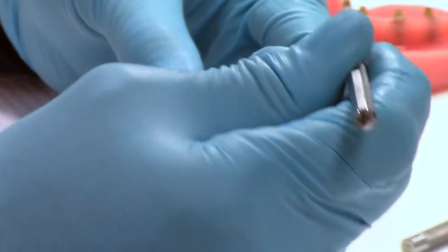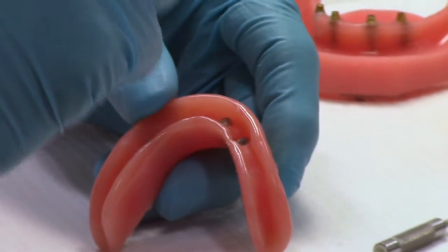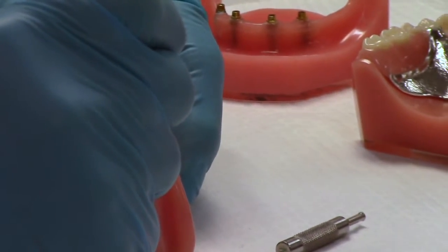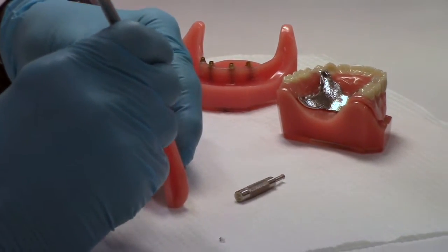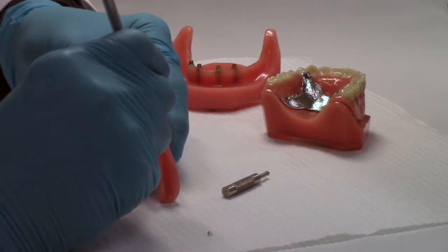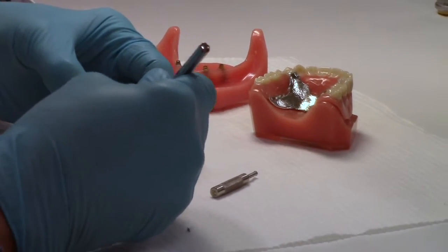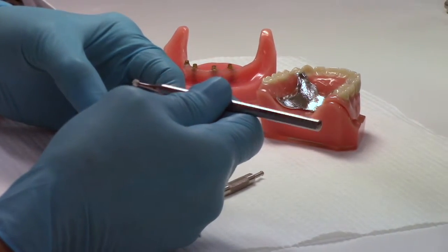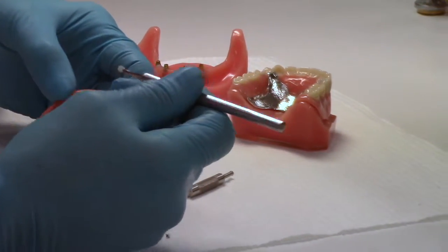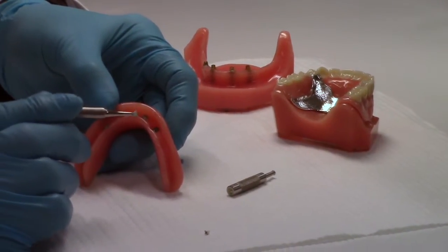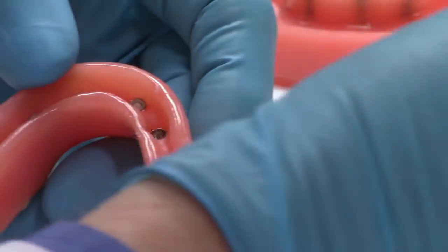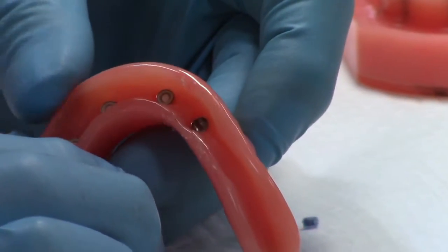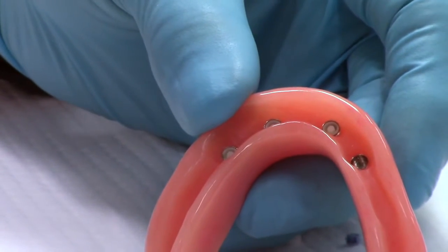So I'm going to use this tool with the scooped out part facing in toward the male. I'm going to put it down outside the nylon, but inside the metal. So straight down, basically. So I've got it straight down, and then I'm going to flip it out. There we go. You can see I've got the side walls on the end of the tool. And so we'll throw that away. And what I have is an empty, let me just blow some of the dust off here. I've got an empty metal jacket.